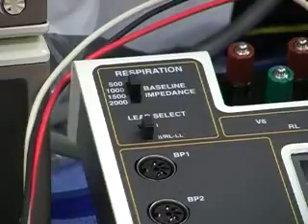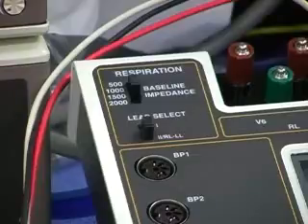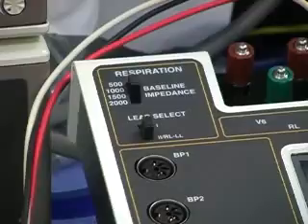And also, in many cases, if you go to 2,000 ohms for the baseline impedance, you're probably going to set off some alarms that say, hey, check your electrodes. There's a problem. It's a very high resistance. But values of 500 or 1,000 are very typical.